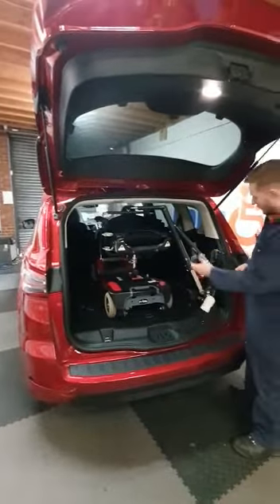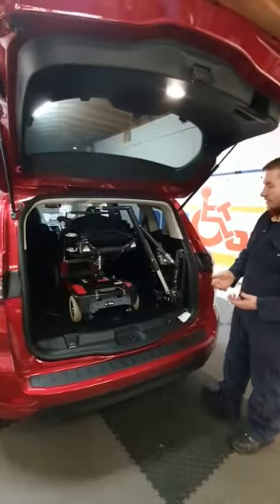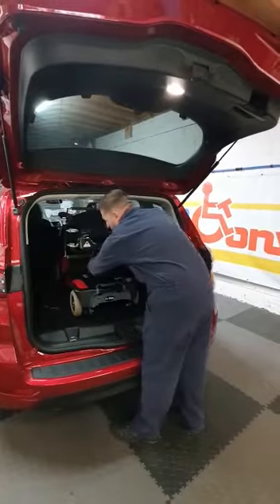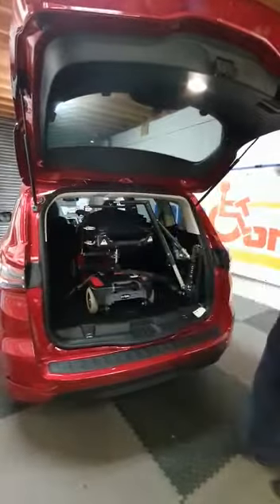We've got a nice magnetic strip on here which we can pop the handset onto, out of the way. Make sure we switch it off — it's really important that we switch it off, otherwise it will drain the battery. Then we can bring our seatbelt around the centre of the seat post here, fit that in, give it a little tug, and there we have it.